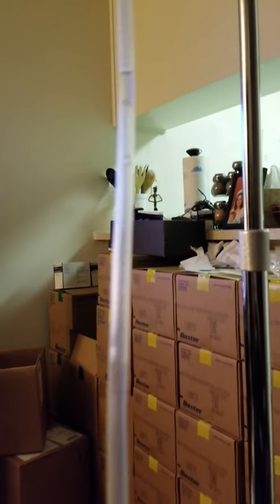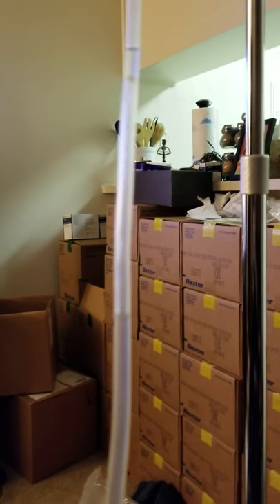So this is fun. Here's my dialysis catheter tube going into my stomach right there. I'm doing a manual exchange, and you can see there — there's the fluid, there's a level of it. Now watch this.